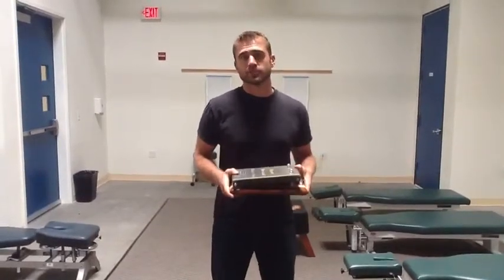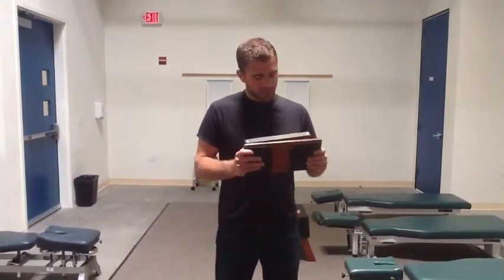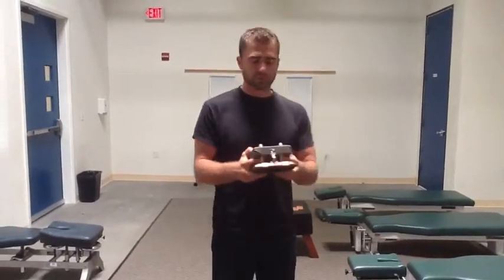This is great for a variety of techniques — Gonstead, Diversified, Knee Chest, Upper Cervical, and Toggle. We've used them to train for all of them. The Speeder Board itself is just made of a padded top, a nice hard bottom, and there are just two springs here with a clip.